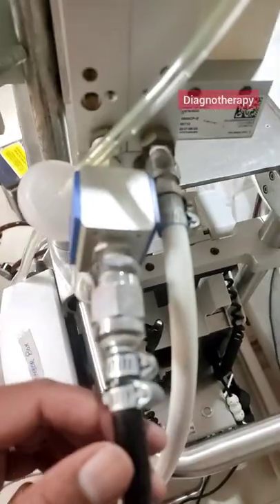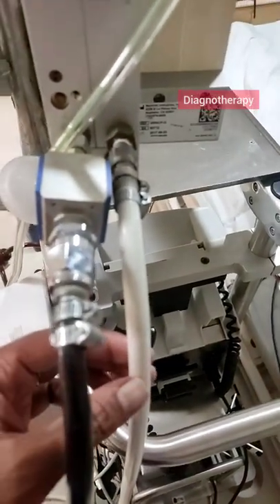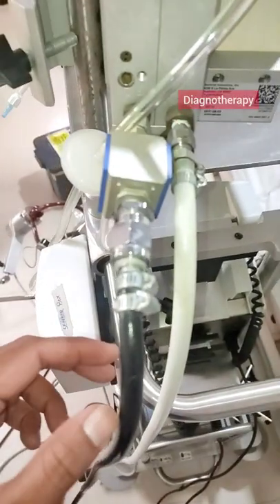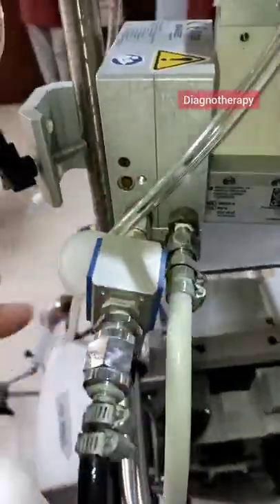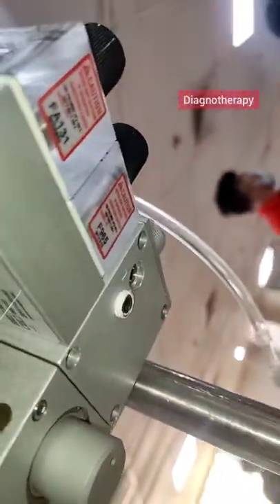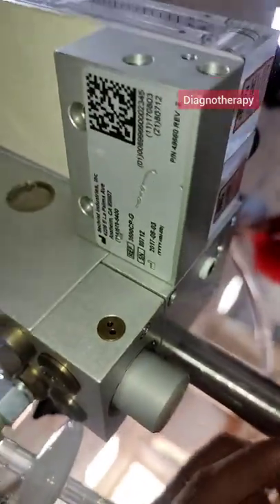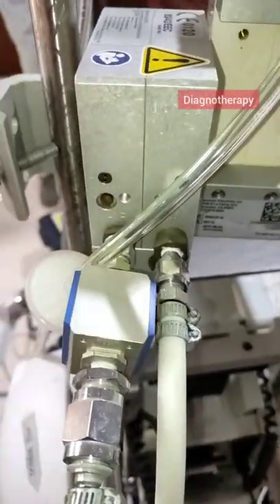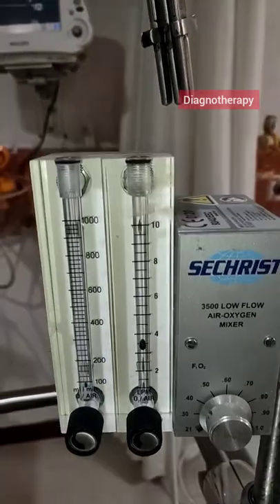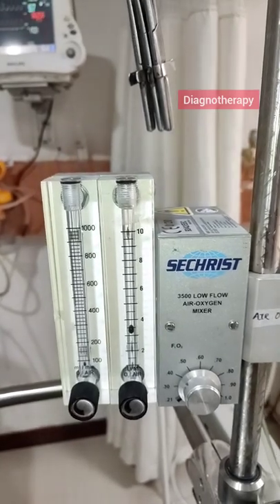Both air and oxygen go to a blender where they are mixed. This is the air pipe and oxygen inlet. At the bottom of the blender there is a mechanism for releasing excess pressure if there is a variation in pressure of air or oxygen, so the extra pressure is released from the bottom part. This is the blender where air and oxygen are mixed and the FiO2, or the fraction of inspired oxygen, is controlled from here.